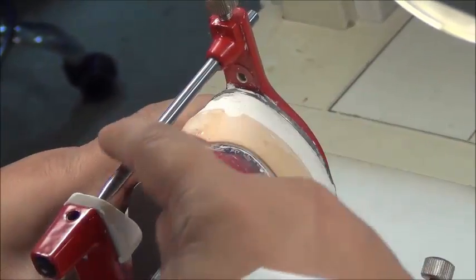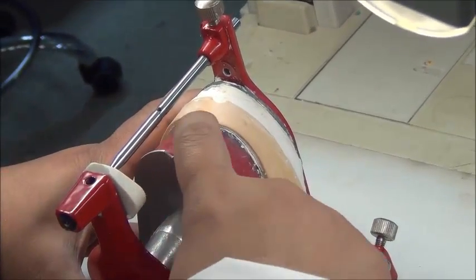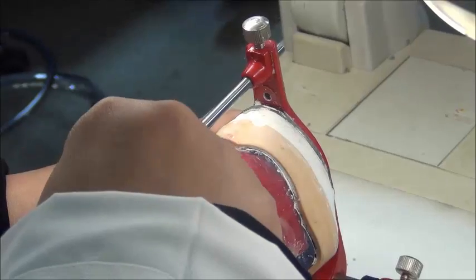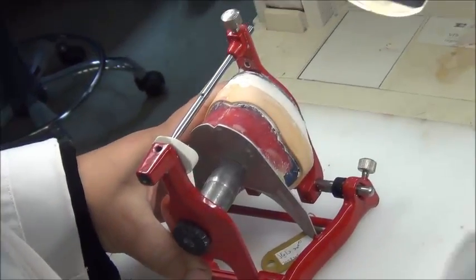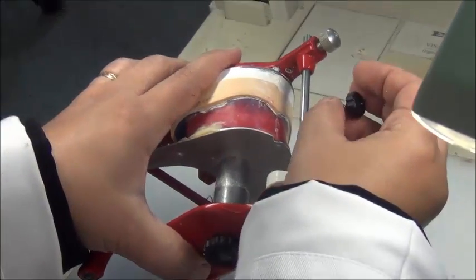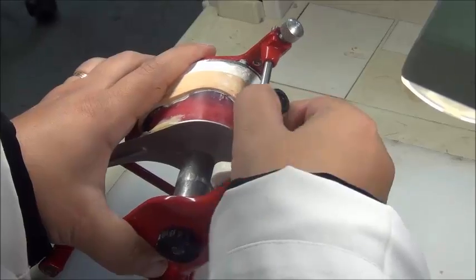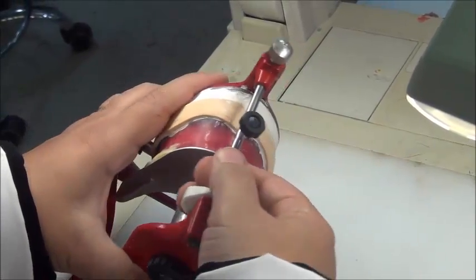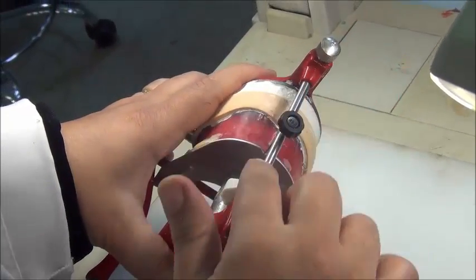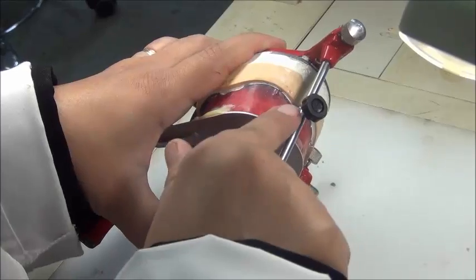We have another reference, the ring, the incisal pin itself. We make sure that the midline on the wax corresponds with the incisal pin. And we also sometimes have a pointer. Does anyone have the pointer? You have midline pointers and what we call infraorbital pointers. We're talking about midline pointers. You'll take this information on the parts of the articulator in the lecture, but this is the midline pin. We orient it, we try to tilt it, so that it's heading immediately to the midline. Why do I need it as an extra? Because the incisal pin is far away from the midline. We want something closer to the wax rim. This is one reason why we use it.